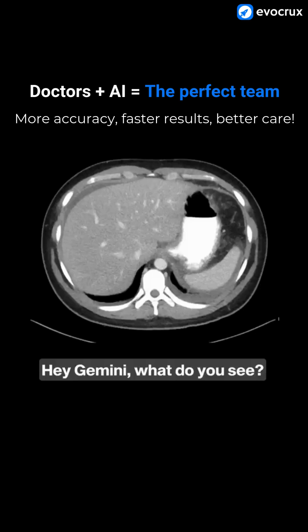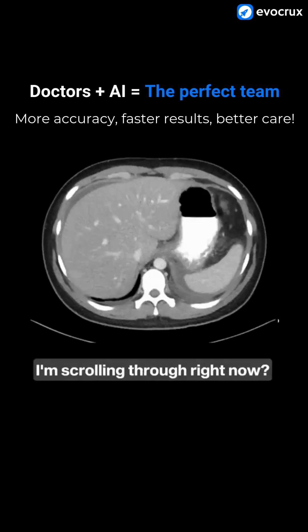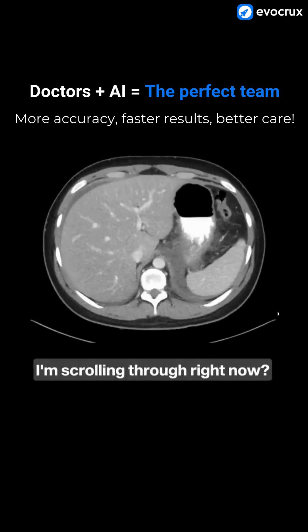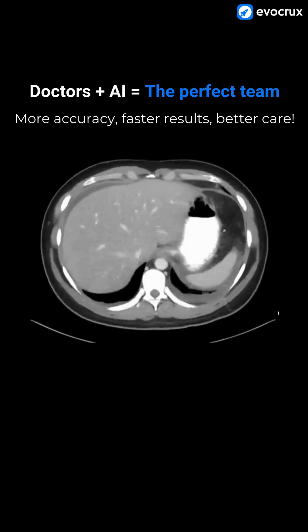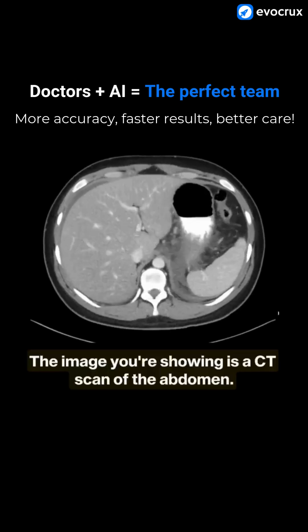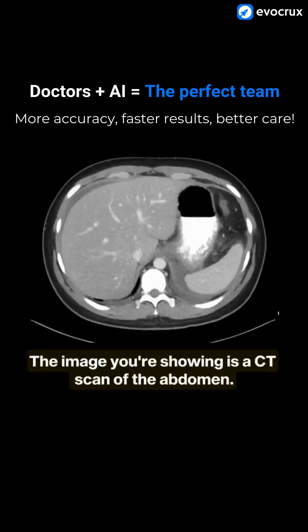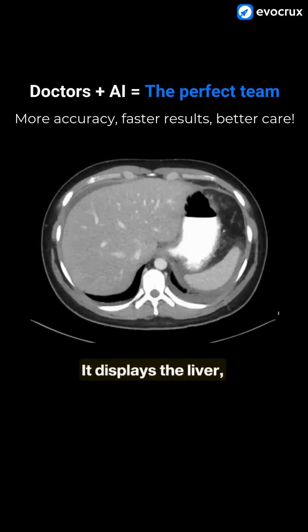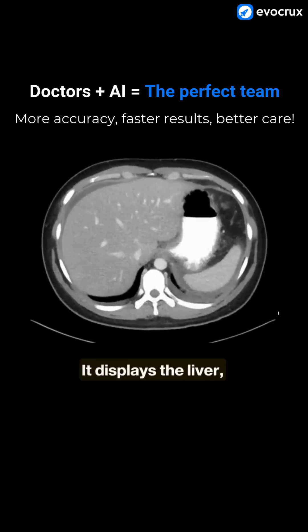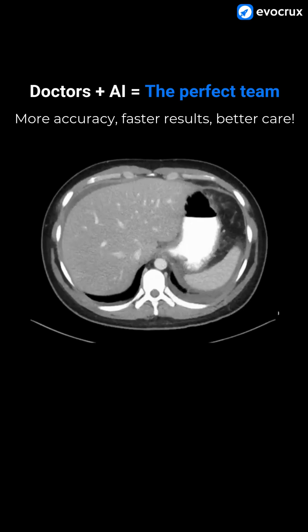Hey, Gemini. What do you see? Can you describe what image I'm scrolling through right now? The image you're showing is a CT scan of the abdomen. It displays the liver, stomach, and surrounding structures.